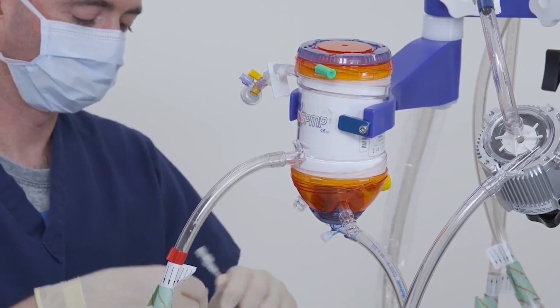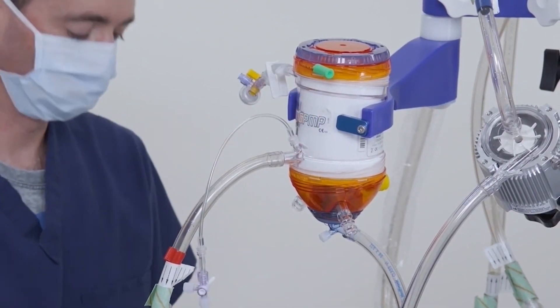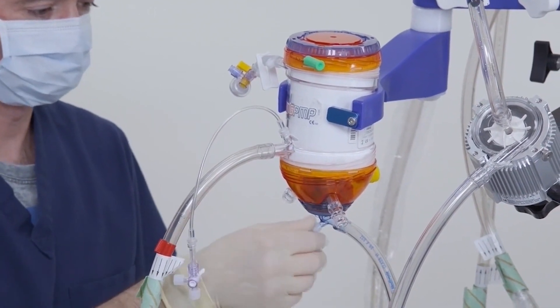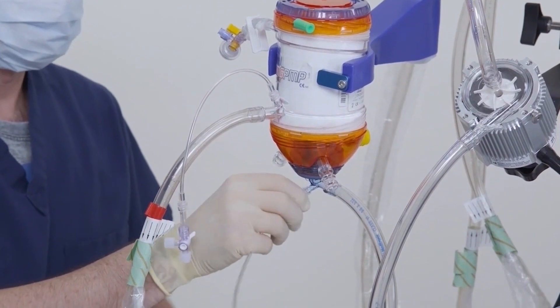The two pigtails provided with the oxygenator may be attached to the blood inlet and outlet ports for blood sampling or to monitor pre- and post-membrane pressures during support.